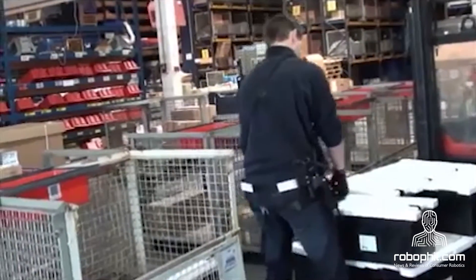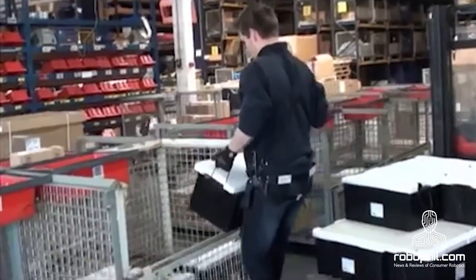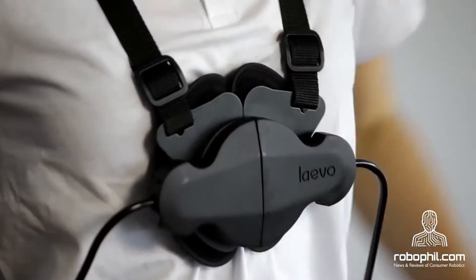The Levo is less suitable in situations when bending and lifting is regularly alternated with sitting and climbing stairs. The Levo is not designed to lift very heavy objects. The six key points of the Levo are: one, the Levo is easy to put on, just like a jacket.